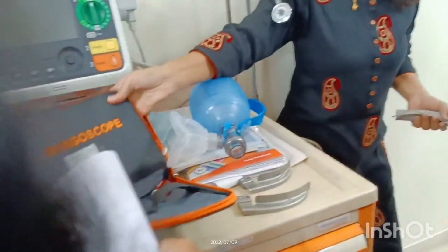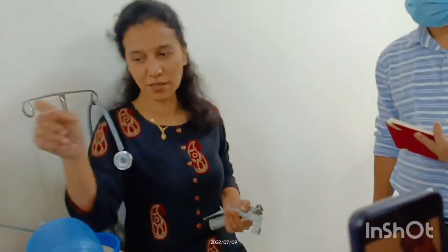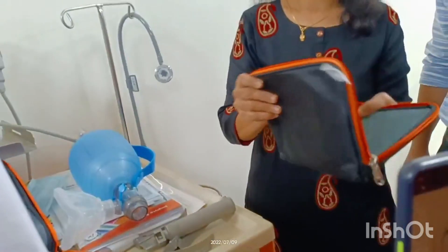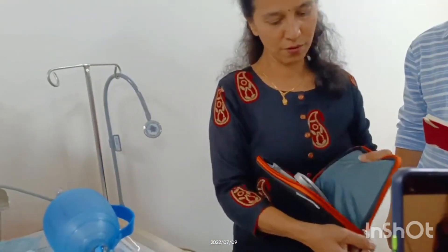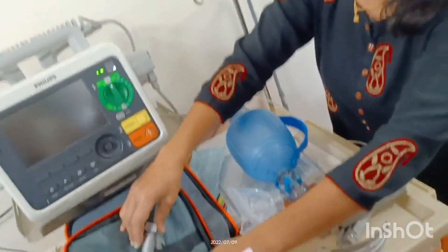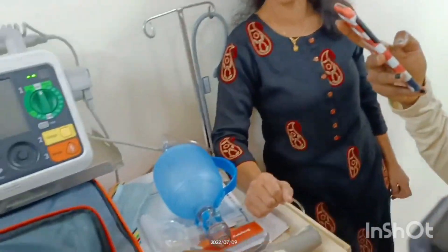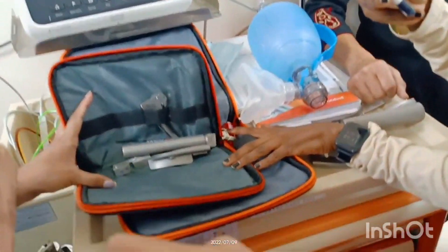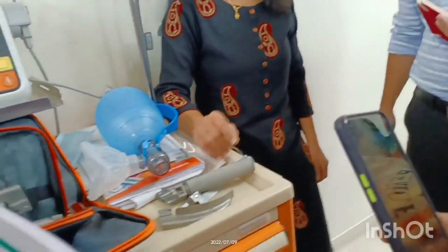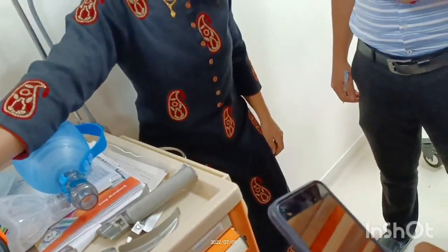This is the pediatric set — the blade size changes for pediatric patients. I won't go into detail about pediatric intubations because we rarely do them, and only when there is no one else available. For adults, even within the adult set there are different sizes, which I will cover.